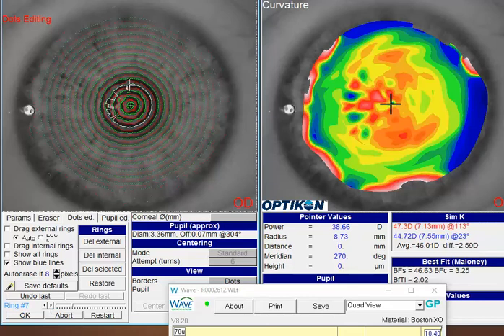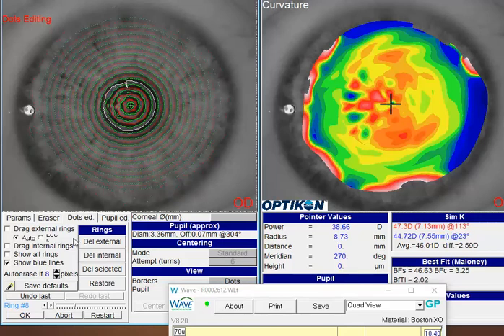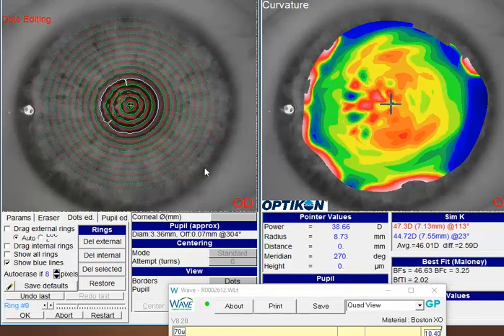Go through each mire and just kind of smooth them out manually. When you do that, it just takes a little time to go through this area and you'll see that it starts smoothing that area out manually. Once you do that and do the saving, you'll notice that the topography tends to smooth out a little bit on the design. Then when you redesign the lens, I think that will help this lens sit a little more nicely on the eye.